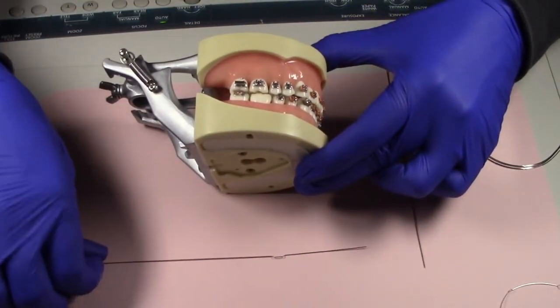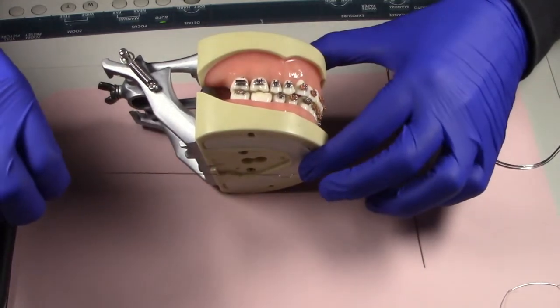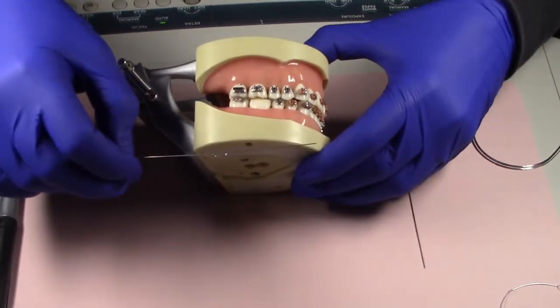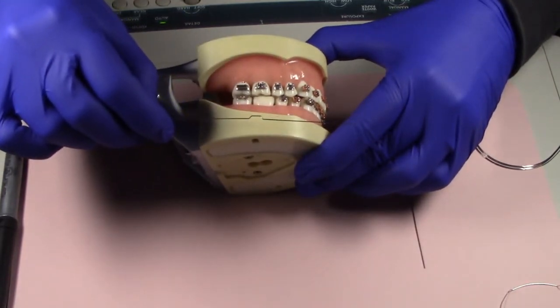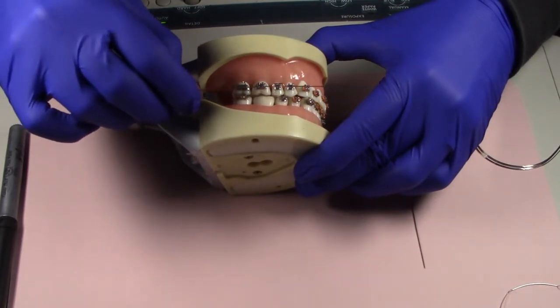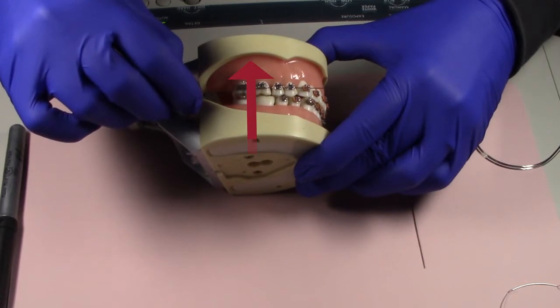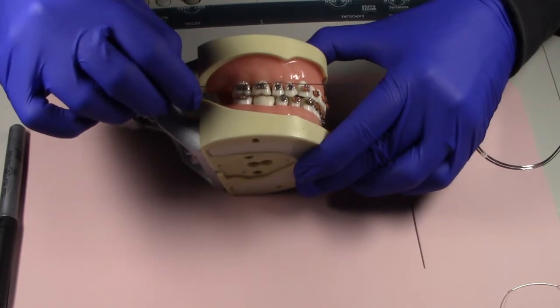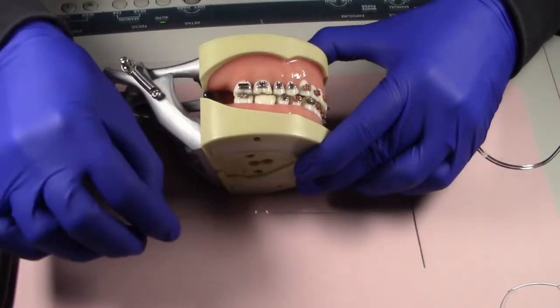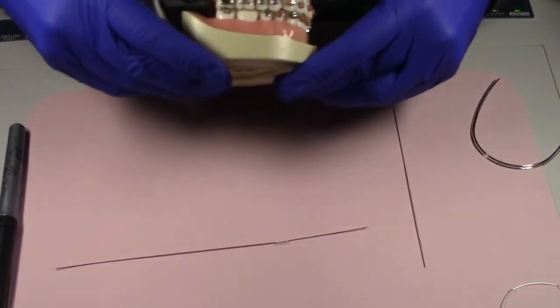So for instance, I just made this really small bend here to kind of explain what the wire bending does. If I have a bend in a wire that looks like this, like I said, that little tabletop right there, it's going to nestle inside of a bracket. And in this case, you can see that that is going to push that tooth inward or toward the gingiva. So that's a type of bend that's going to affect tension placed on that bracket and push that tooth and move that tooth in a certain direction. So that's the reason that we do have wire bends in arch wires.